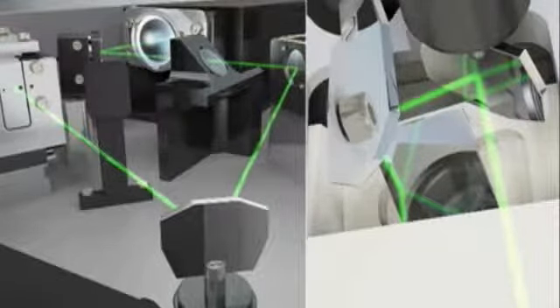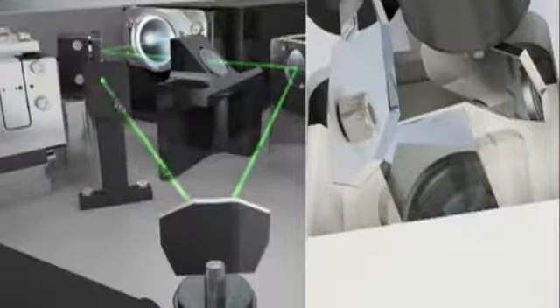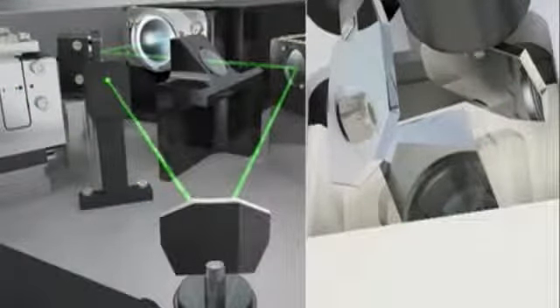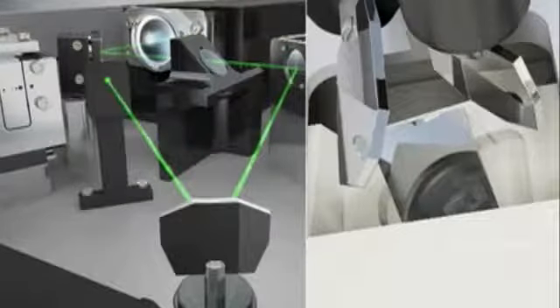While the galvo in the laser console is directing the beam away from the fiber, the two slit-lamp galvos move into position for the next pulse in the pattern.